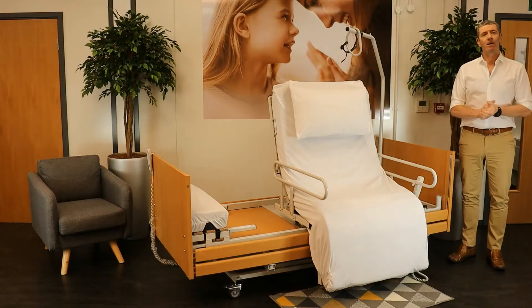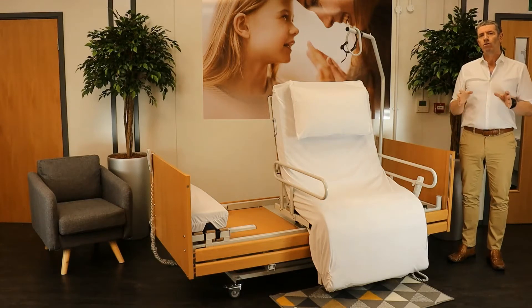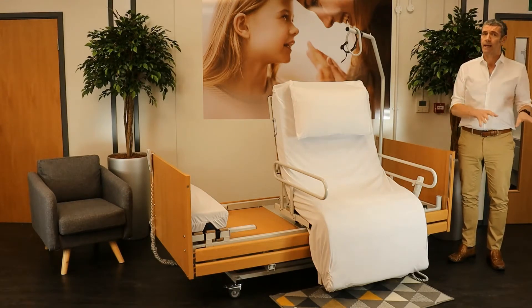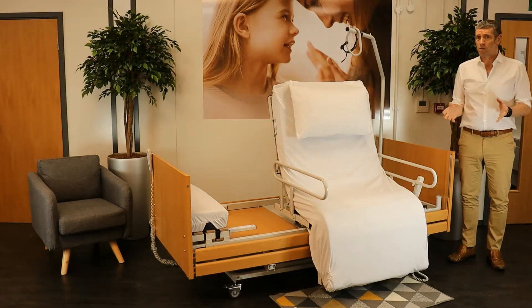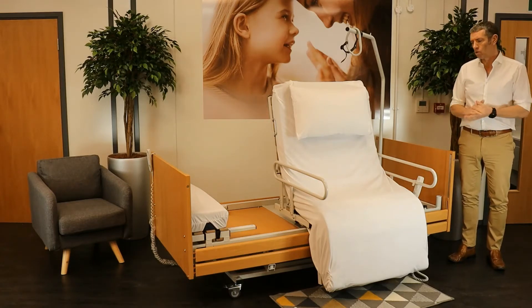I'd like to talk to you about the Rotopro Rotational Chair Bed. For some people, getting into bed or equally getting out of bed can pose problems. That can be due to their medical conditions or general health — it might be something as simple as general mobility issues. So let's remember, this could be applicable to a wide range of audience.